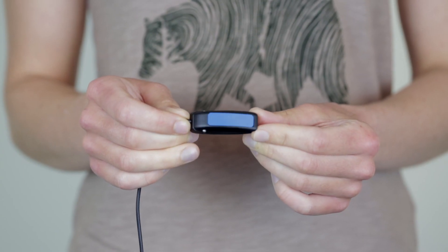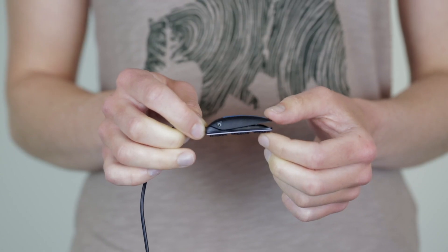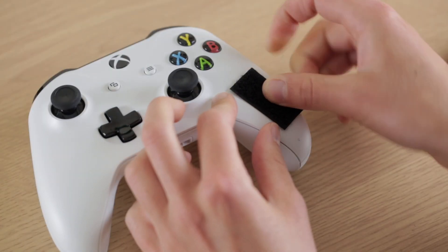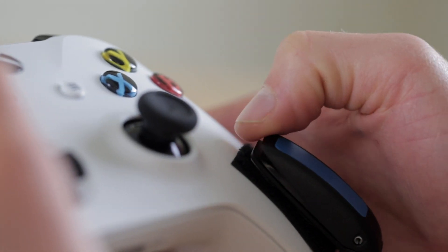The Ultralight switch is a small, lightweight switch. It requires very little pressure to activate and provides audible and tactile feedback when the switch is being pressed. We use these with people who have very small movements or limited strength. They are great for mounting on controllers or in small spaces where people might have tiny movements.